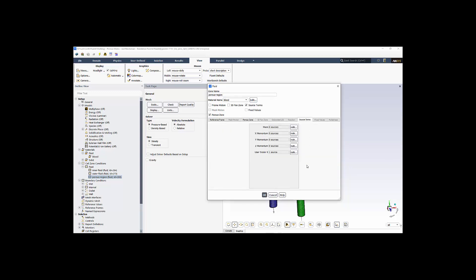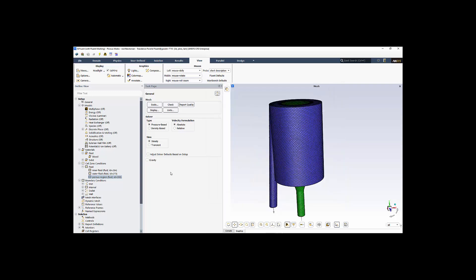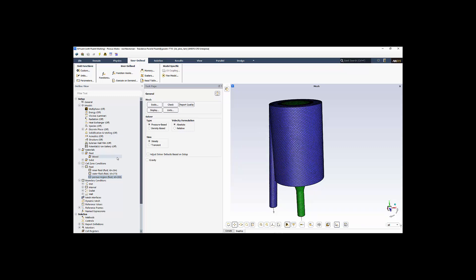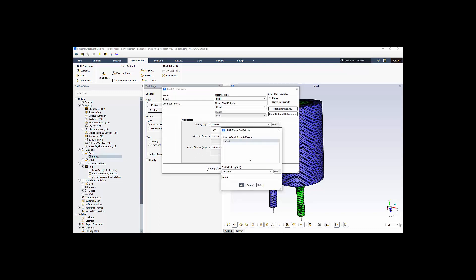And the source term is actually created using a user-defined scalar. And that user-defined scalar, we're showing here. We edit that. We set that value to be equal to the density of the fluid. That's going to be used to determine our residence time. So once we set that up, we do that for each of the fluid zones, and then we can determine residence time. Define scalars. User-defined scalars, we have one. That's all you can set that up. And then in each region, you label that source term. And then in the blood definition, we have a user-defined diffusivity here. We edit that and put a very low value. That's the value of diffusivity divided by the density.